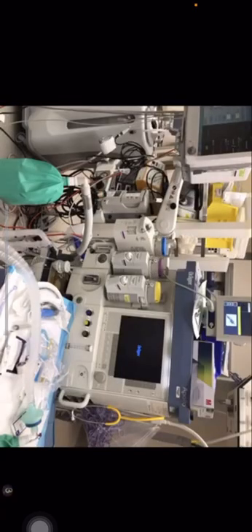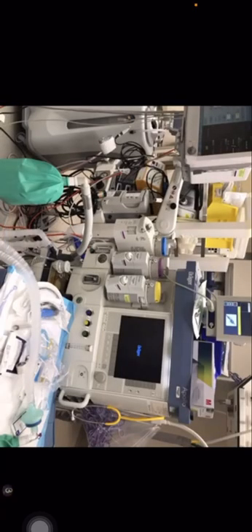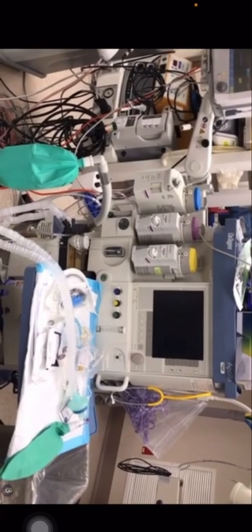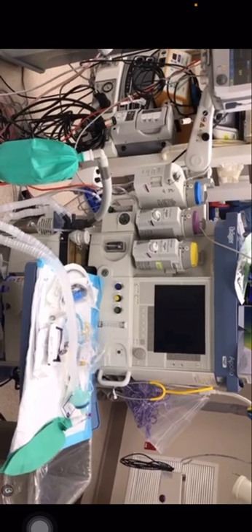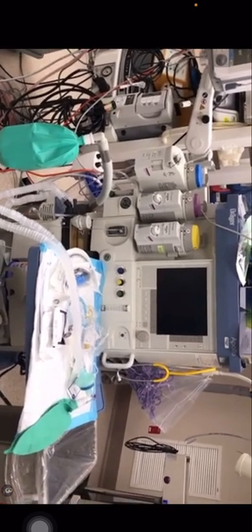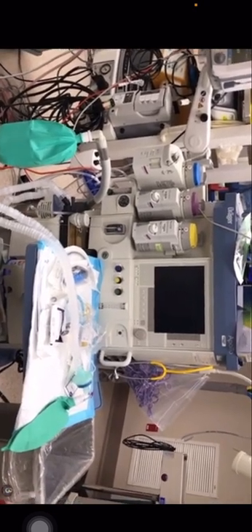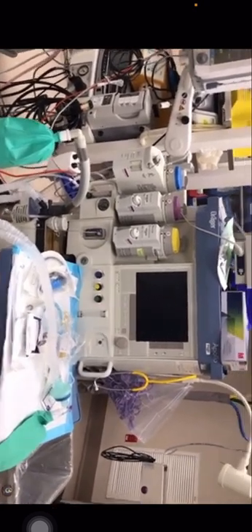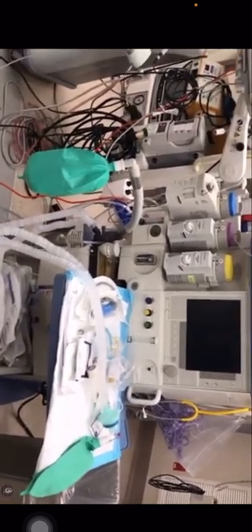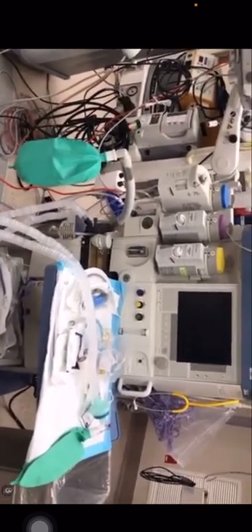Hello, this is Amin Al-Asif, Medical Instrumentation Engineer. Today we're going to talk about the anesthesia machine and its components. Let's start with the anesthesia machine for medical instrumentation engineers.